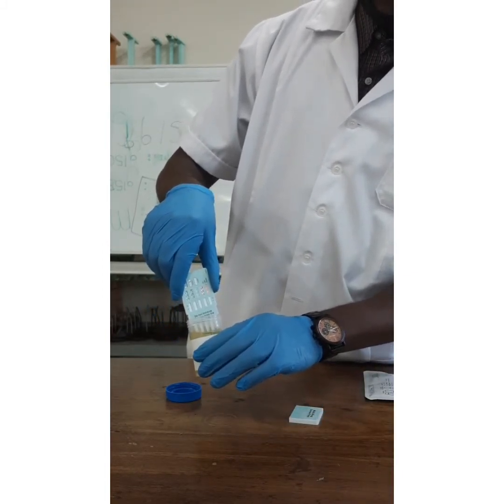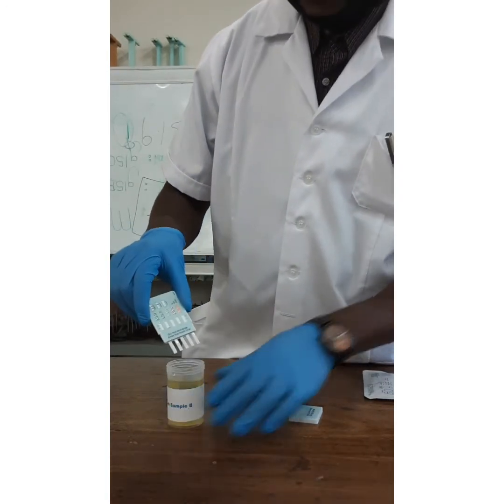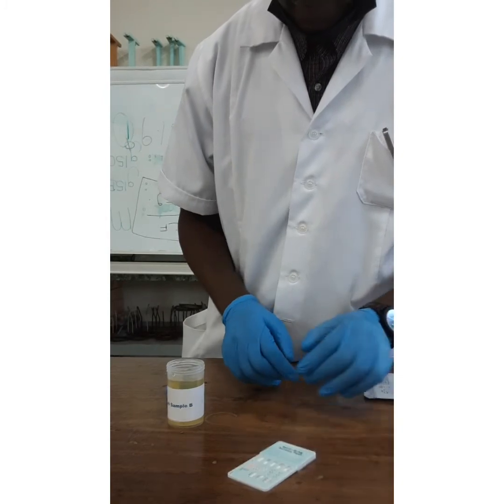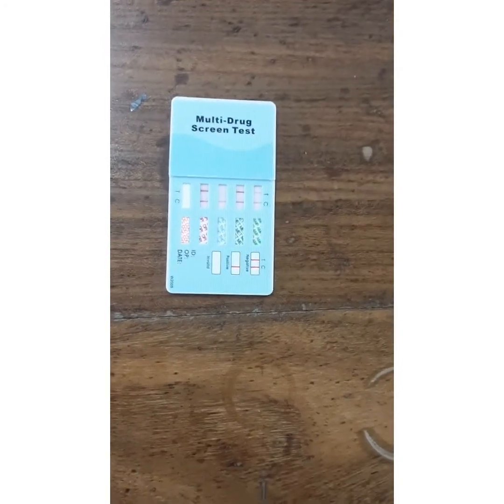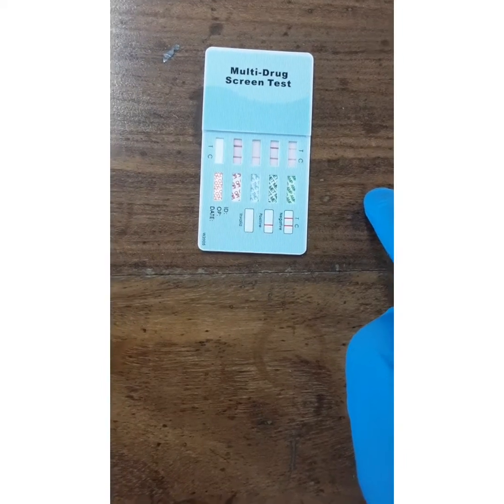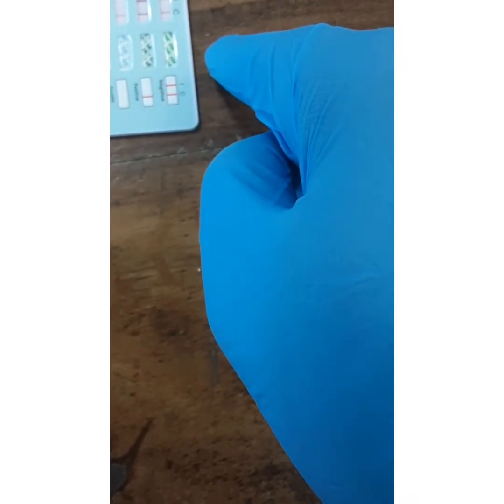1, 2, 3, 4, 5, 6, 7, 8, 9, 10 — dip it in the urine sample for 10 seconds. As you can see here, this urine tested negative for amphetamines, it also tested negative for meth, it also tested positive for tetrahydrocannabinol — which is a metabolite of cannabis — and for opioids it also tested negative.